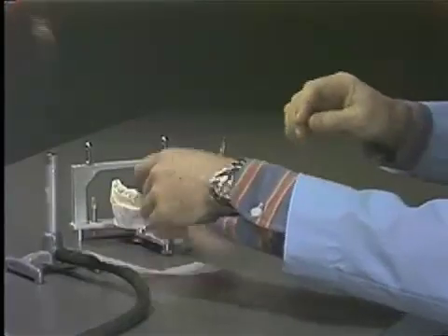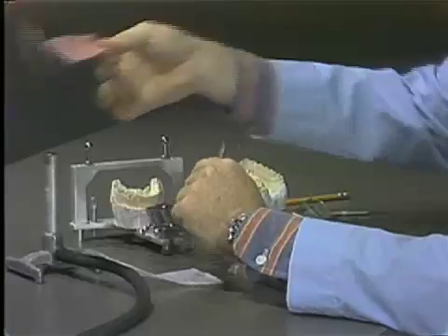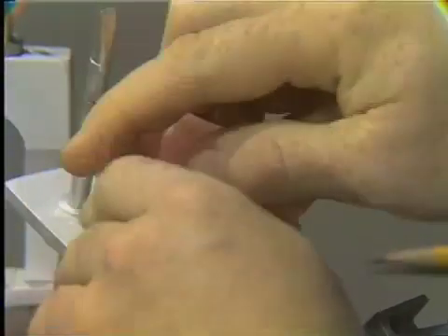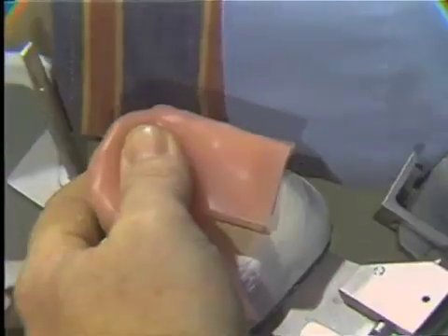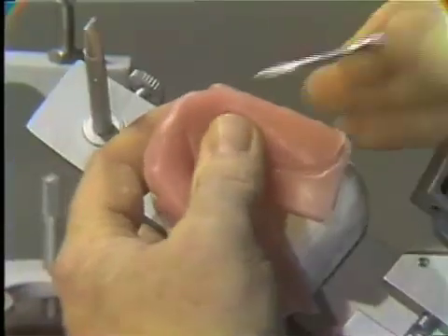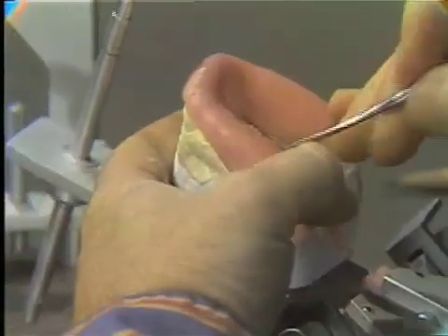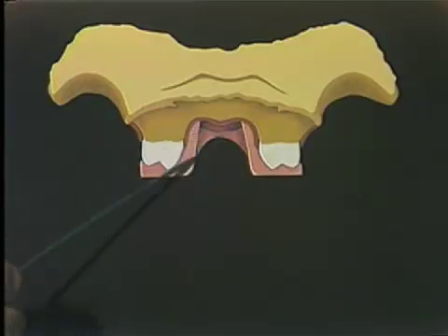Undesirable undercuts should be eliminated with plaster. Take a sheet of baseplate wax, gently heat it, fold it in half to give two wax thicknesses. Reheat and then rapidly apply this to the outline which you have just established. This is only a rough application at this stage — now remove any excess. This is a cross-sectional view in the molar region looking anteriorly, showing the adaptation of the wax around the teeth on the lingual and anterior section.